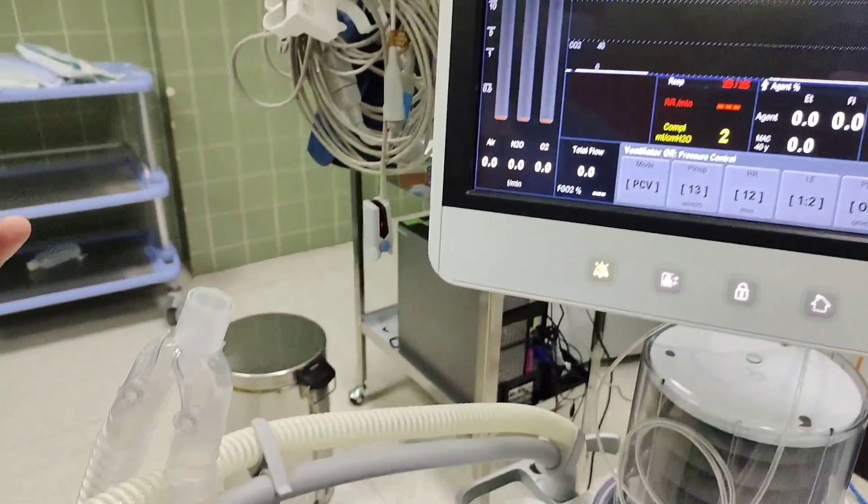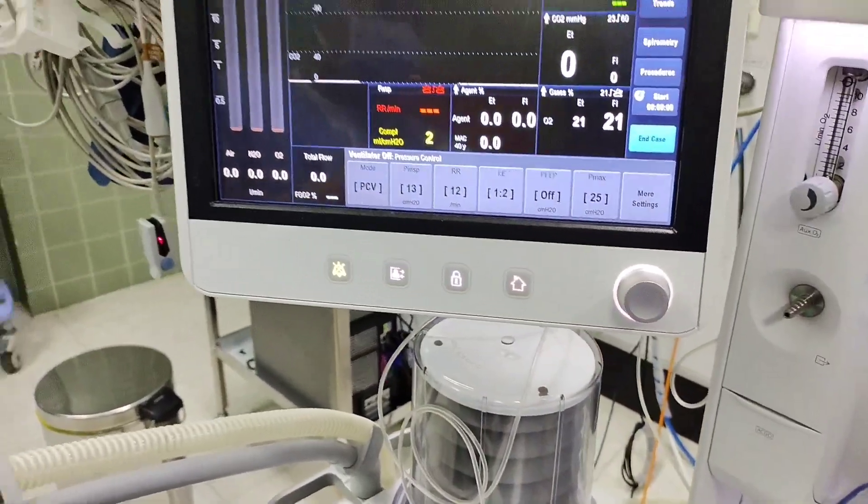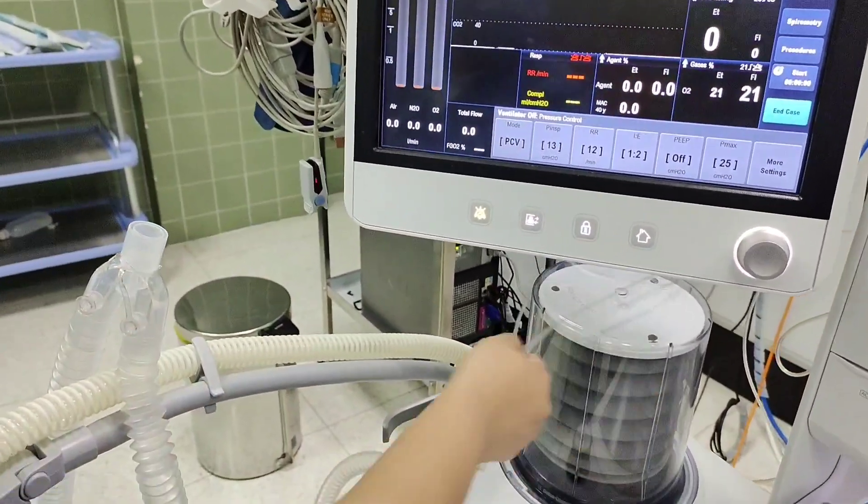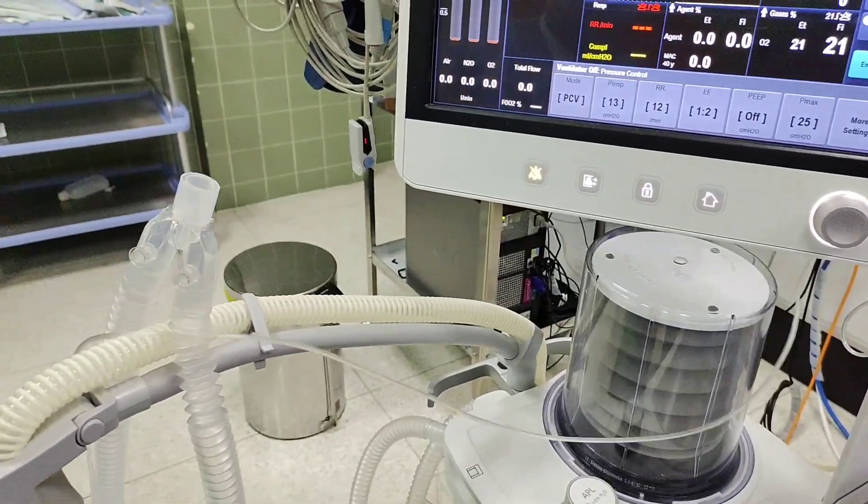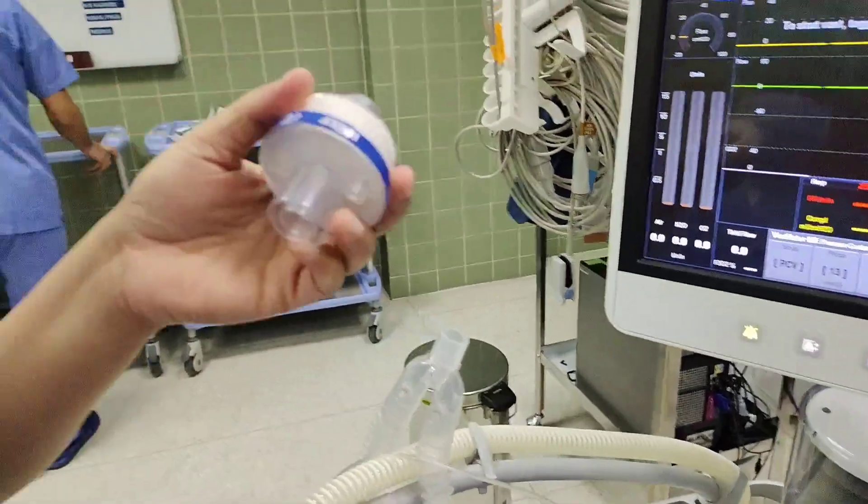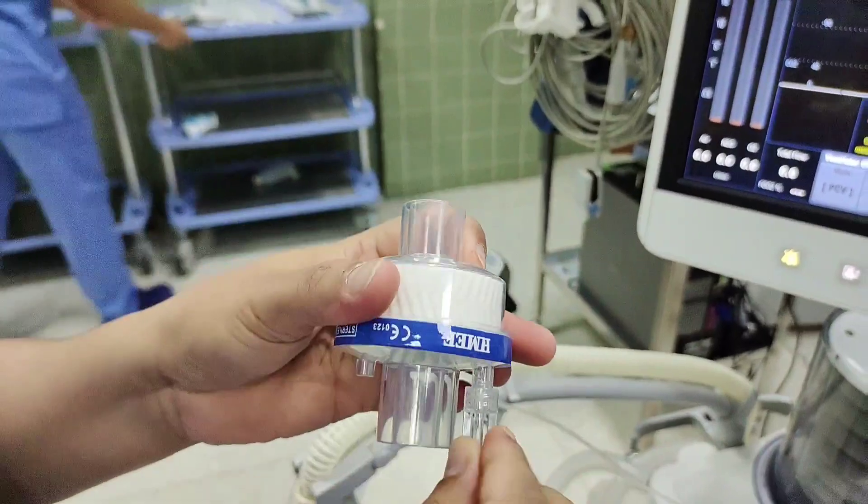After this one, this is the capnograph hole. We have to connect this one here. Before we were connecting with another one, but now we started to use this one.